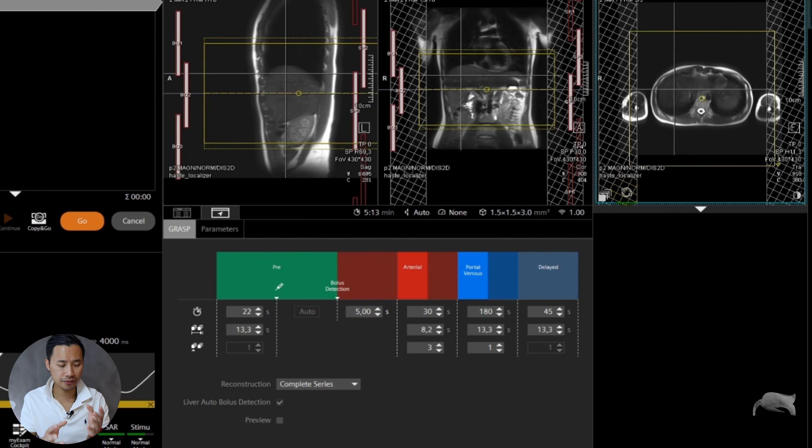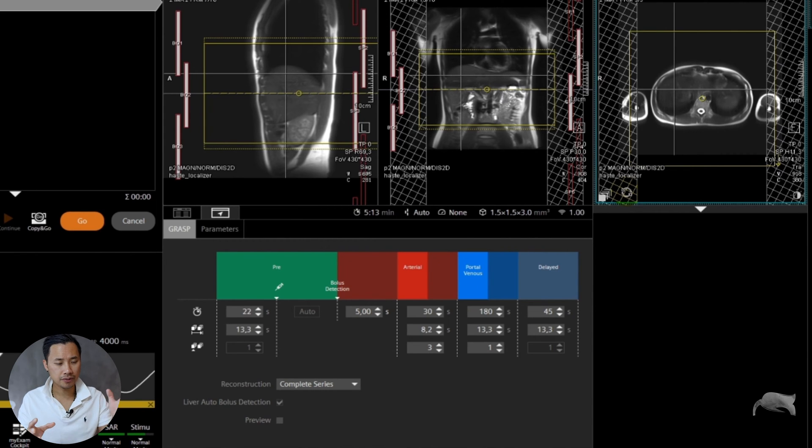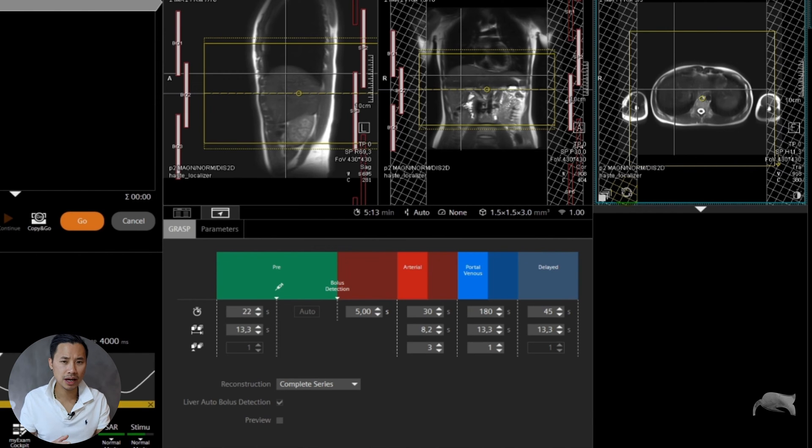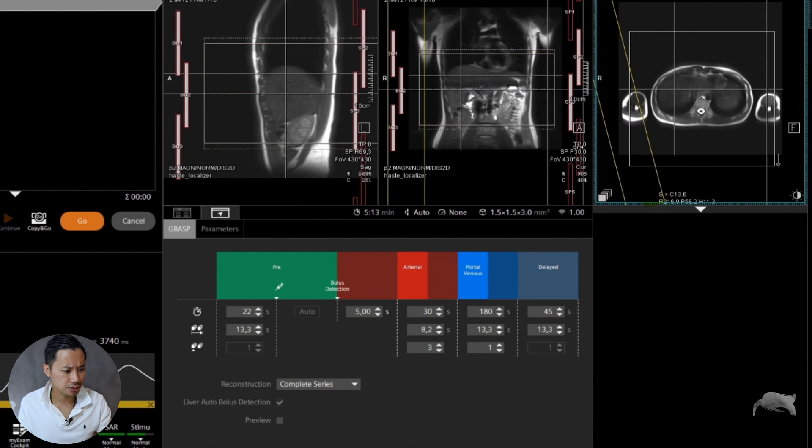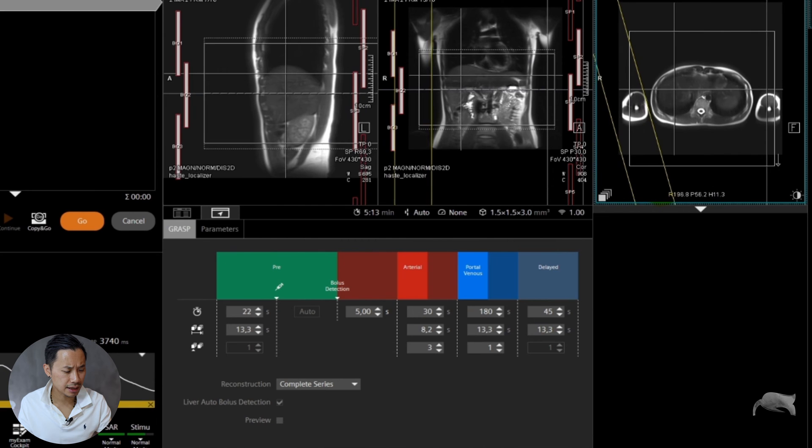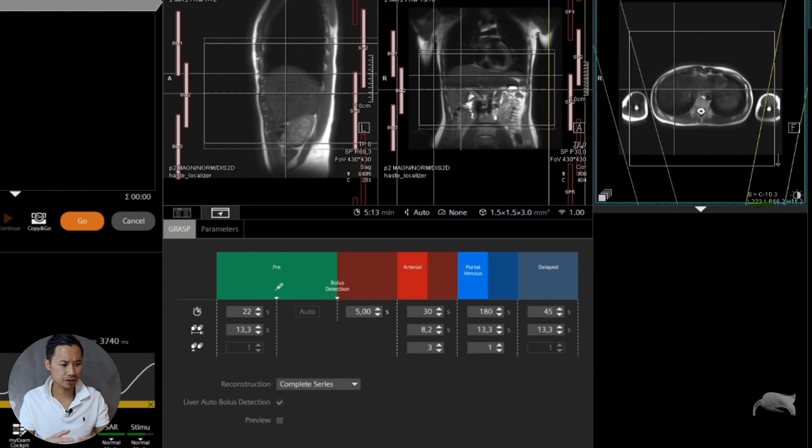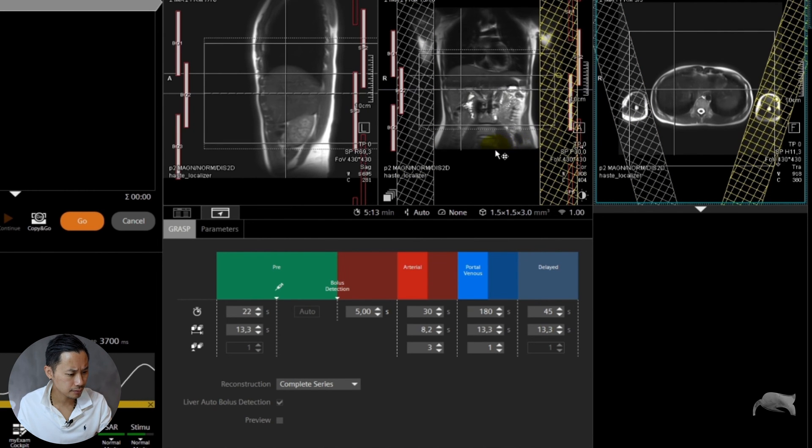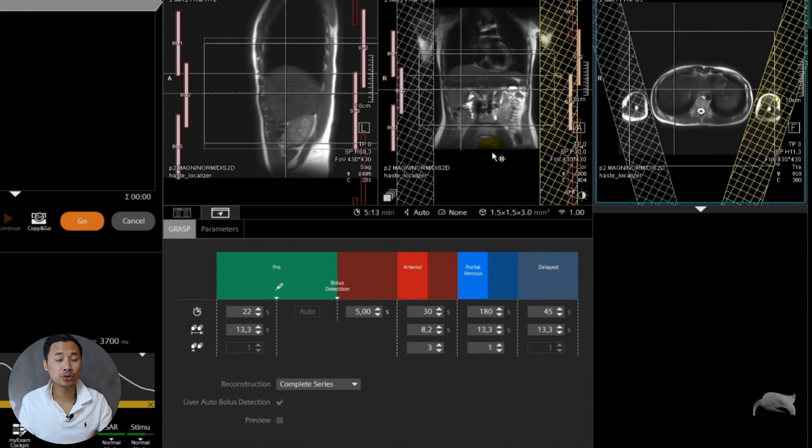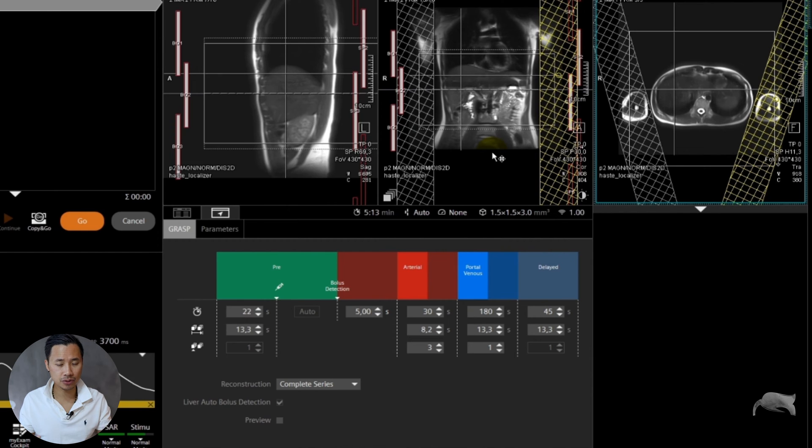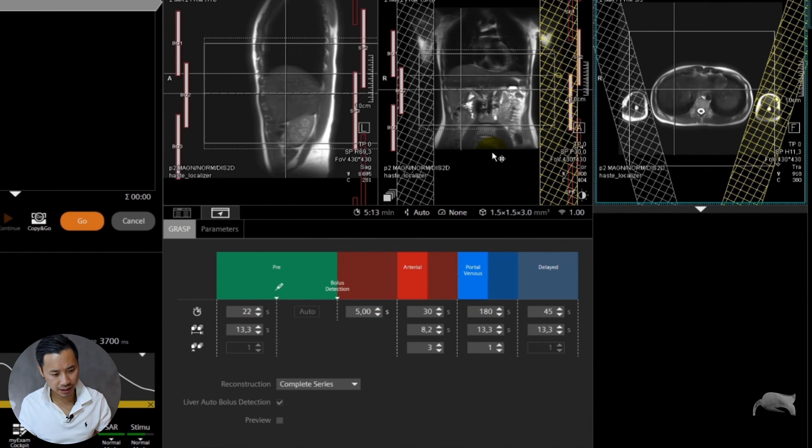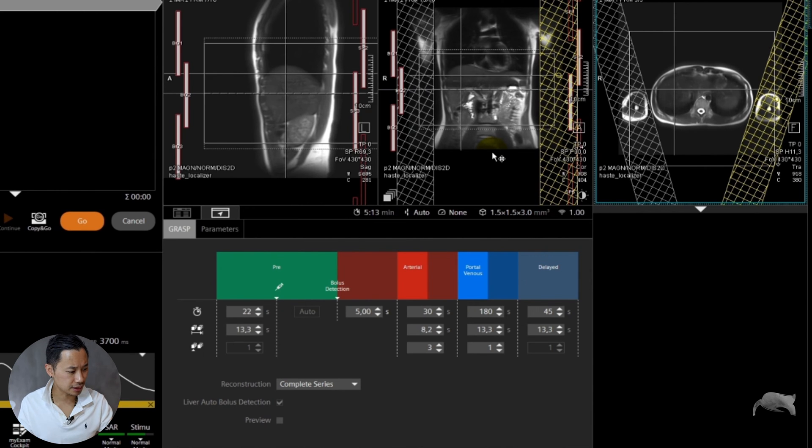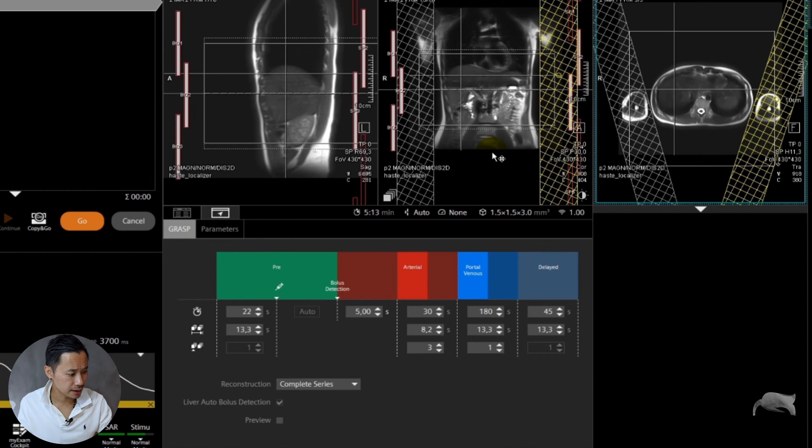You know, whenever you're giving contrast, from the pre to the contrast, the artifacts are gone. But I want to have good pre-images without artifacts. Usually I just angle it like this, trying to angulate it and eliminate most of the body. Another thing you can do if you want to totally eliminate this problem with the streaking is tell the patient to have their arms above. But going from arms above to arms down, I don't like that. I want to have the patient lying correctly all the time.